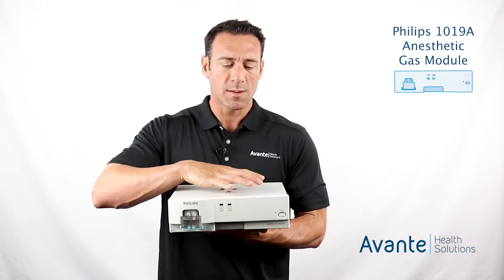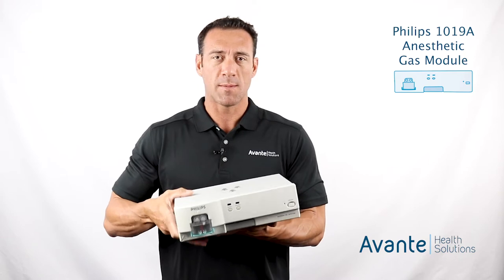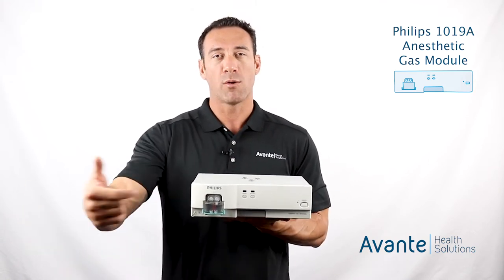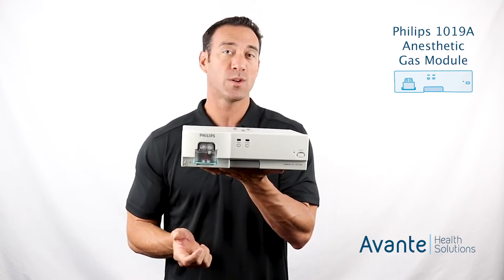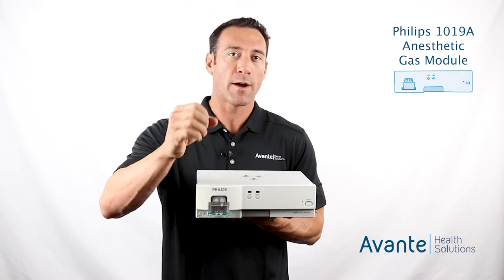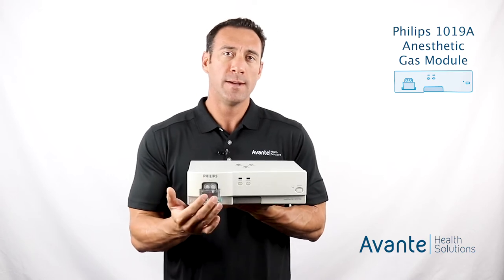This unit is used in conjunction with a standard patient monitor — an MP or MX series monitor — and is plugged in just below it. These have table mount prongs on the bottom and are connected to the patient so their respired airway gases are fed into the product. This plastic component on the front is a water trap, which catches any liquids respired or breathed out by the patient before they enter the internal features of the product.